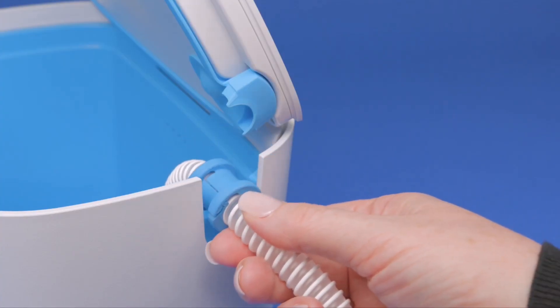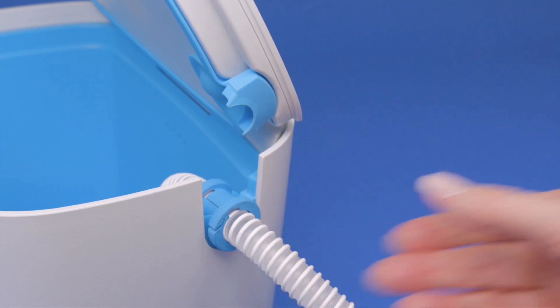Place the hose in the hose slot, lining up the hose sleeve with the hose slot gasket, and shut the lid.